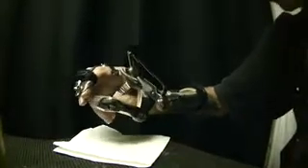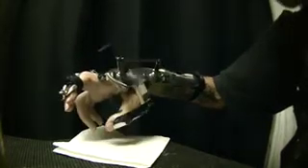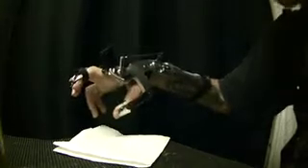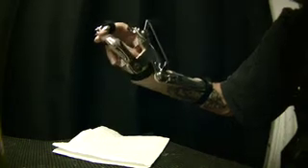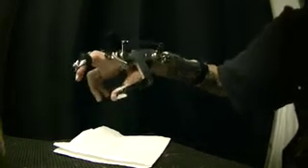It's a little deceiving how it looks, because it seems like I'm opening my hand on my own, but I'm just lifting — this is relaxed. Right now my arm is relaxed. If I lift my wrist, it pinches together. So if I want to pick something up, I just let my hand relax, put my fingers over it, and then lift my wrist until it pinches. And there it is — it's in my hand.